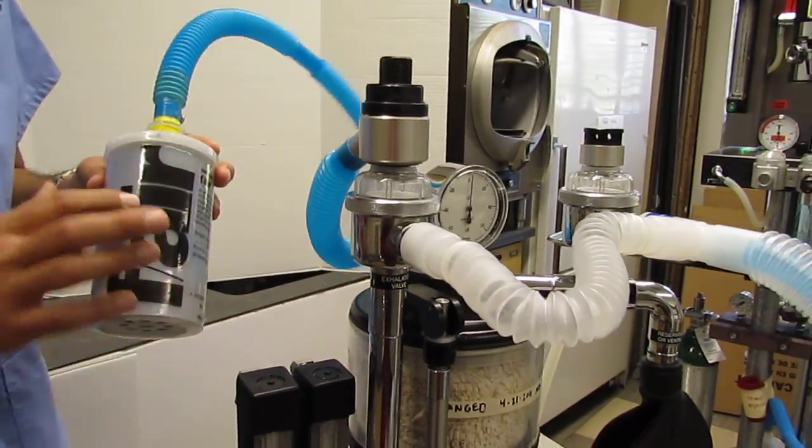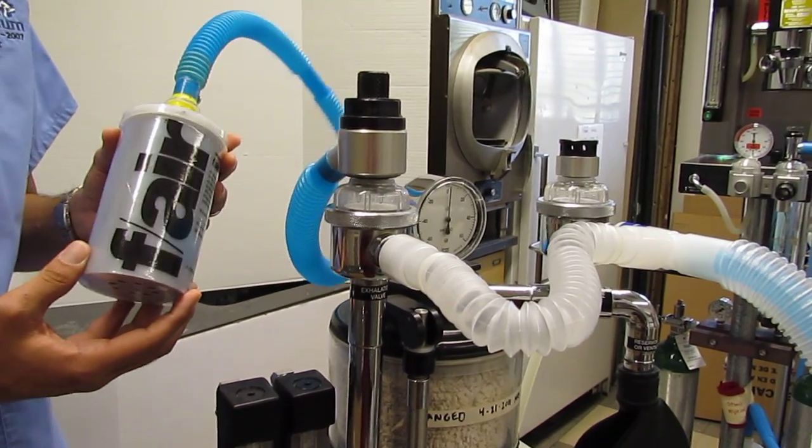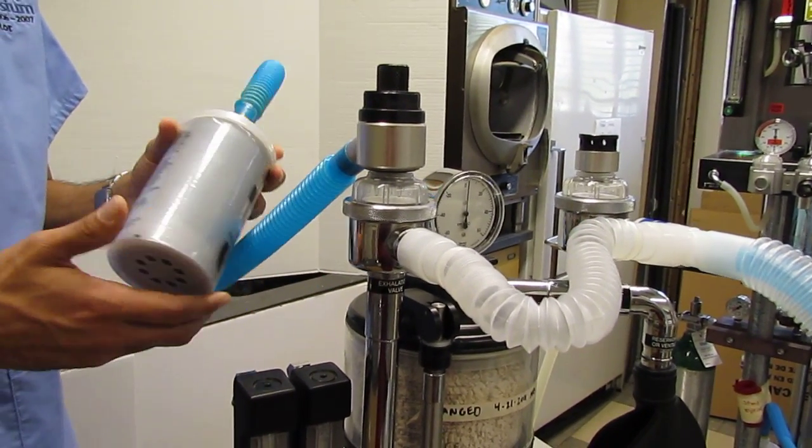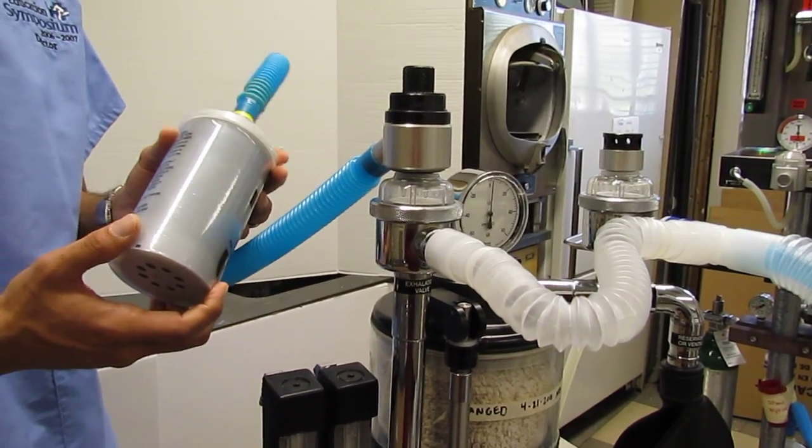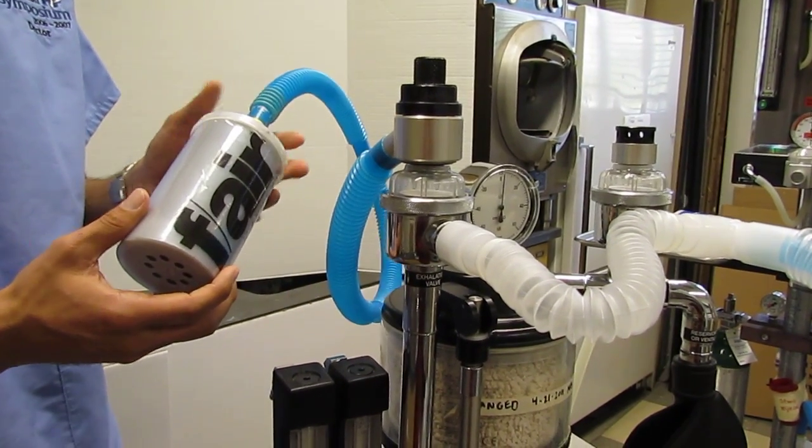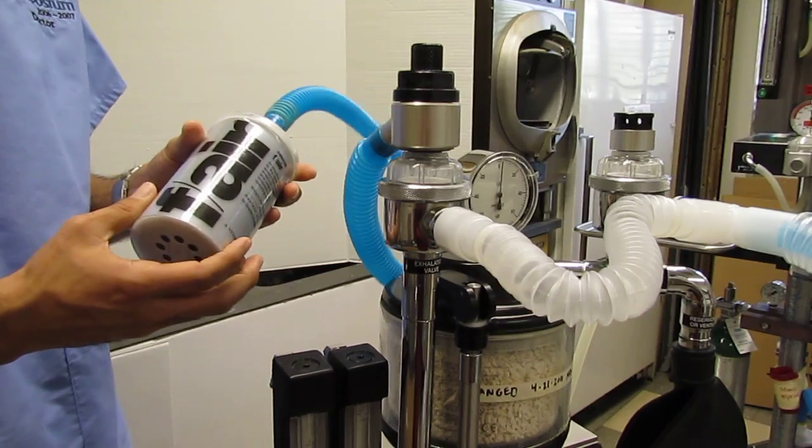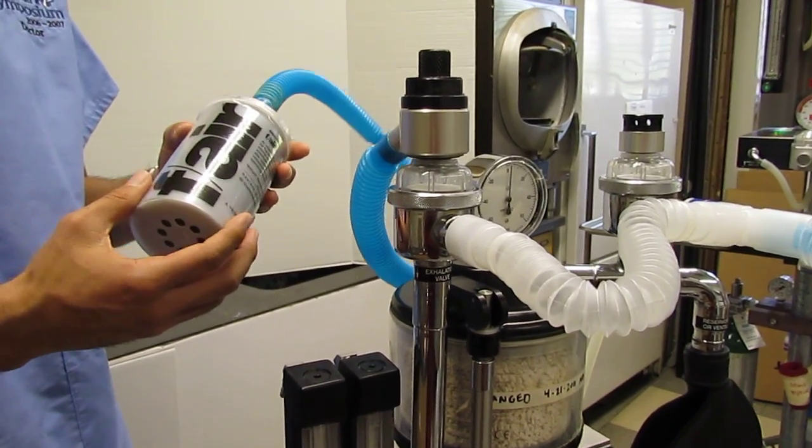The fair canister has activated charcoal in it, which helps to neutralize any expired anesthetic gas so that we don't affect the atmosphere or get it into the room.